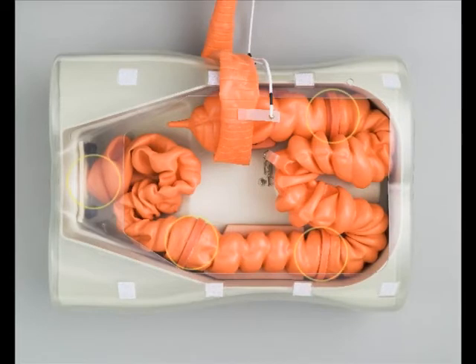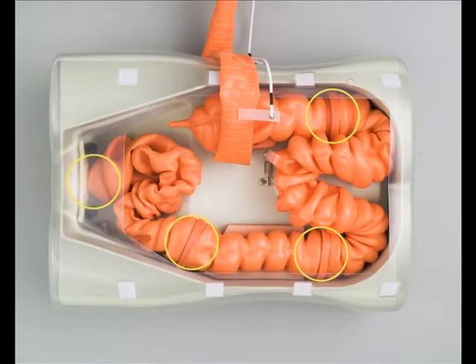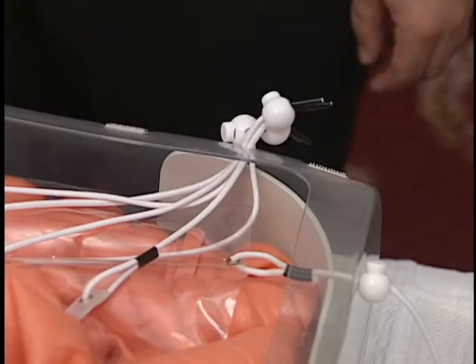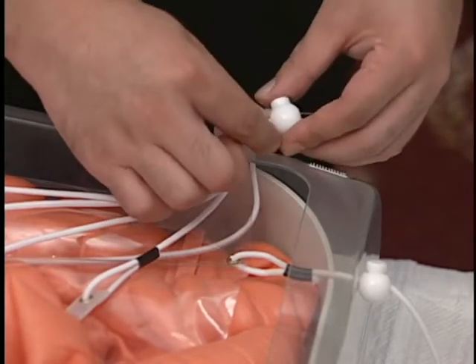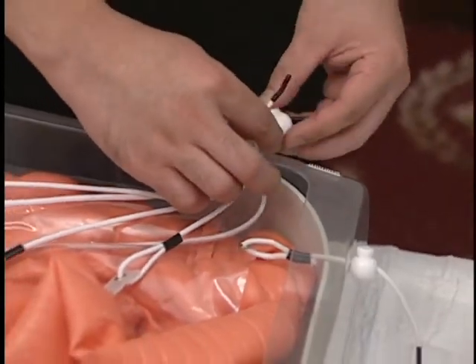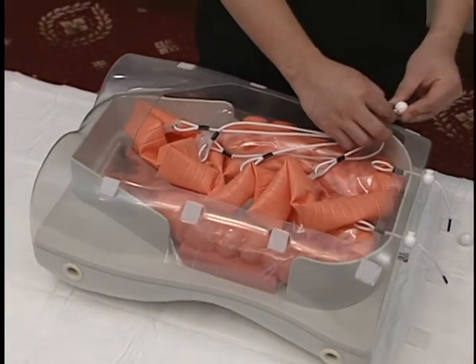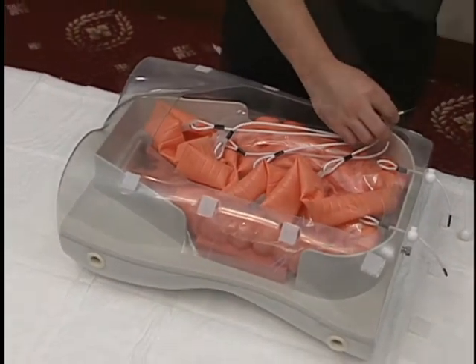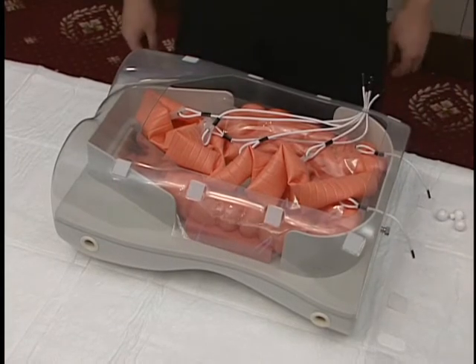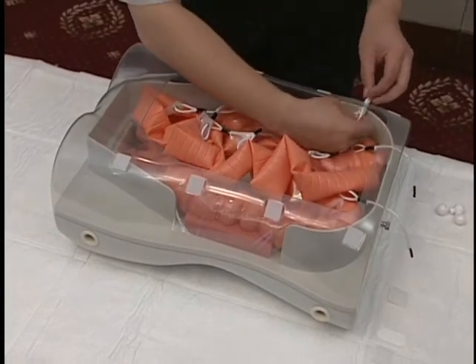This explains how to apply lubricating jelly. Lubricating jelly is applied to four locations. Pull back the simulated peritoneal membrane sheet and remove all round stoppers. Use caution as the tip may be damaged if the rubber straps are not removed one at a time.